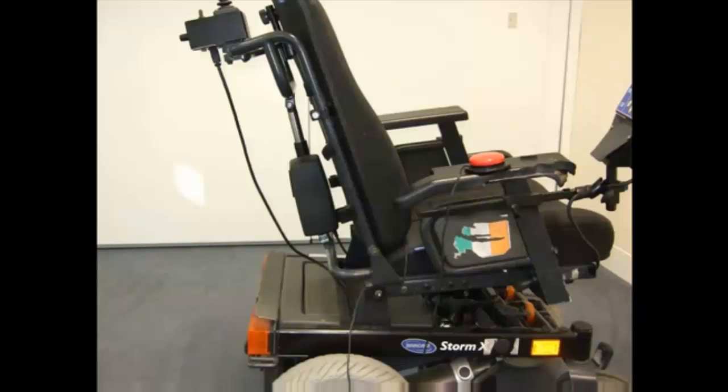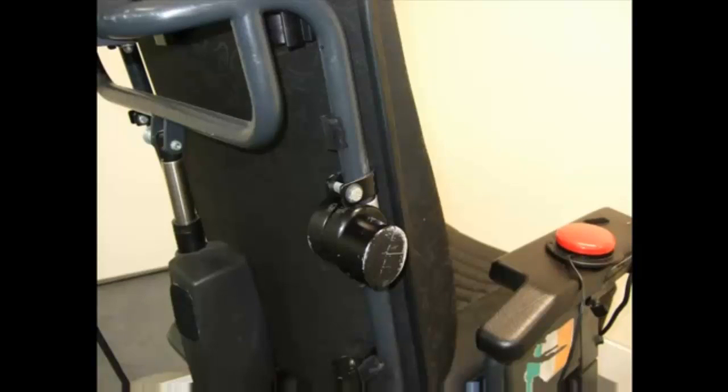When mounting a switch or device to a chair, first decide on a suitable mounting system, then decide on a fixing point on the chair where to affix the mount, and then decide on an appropriate bracket for that fixing point.